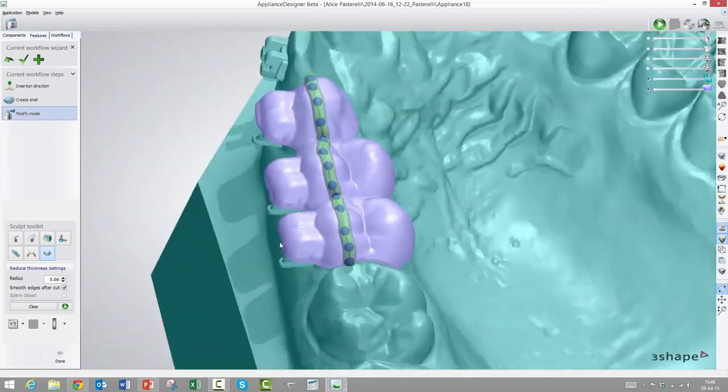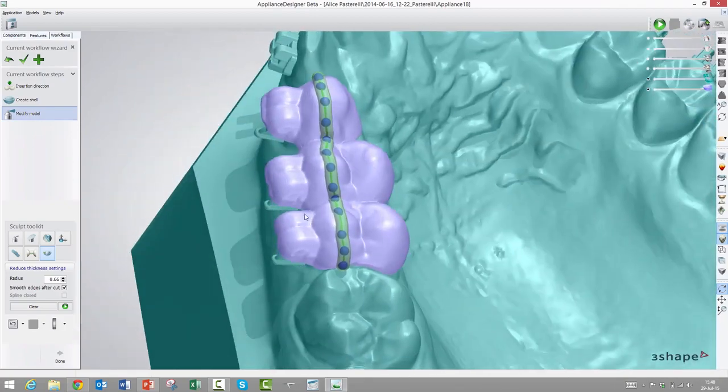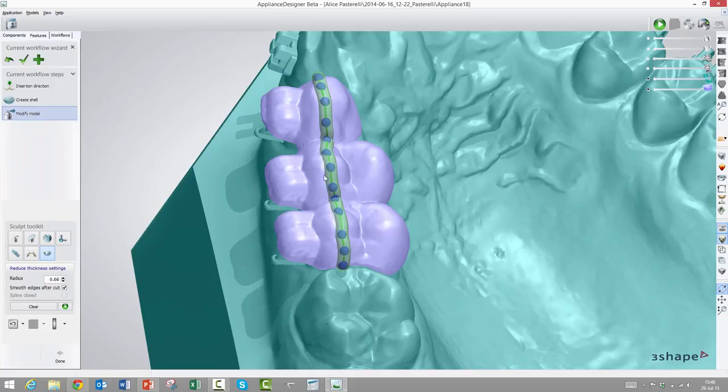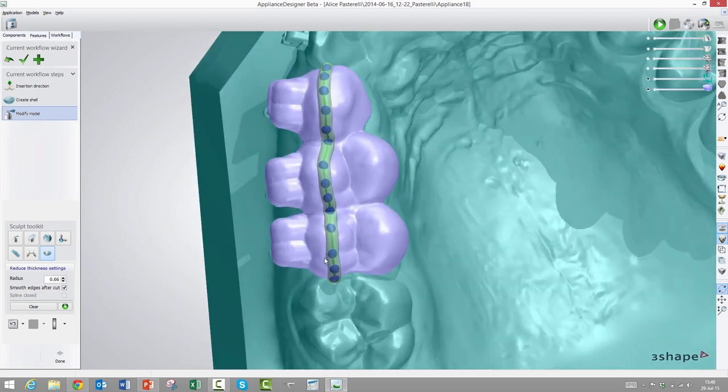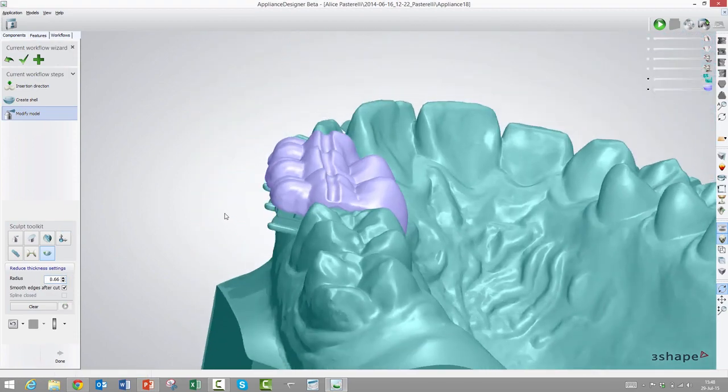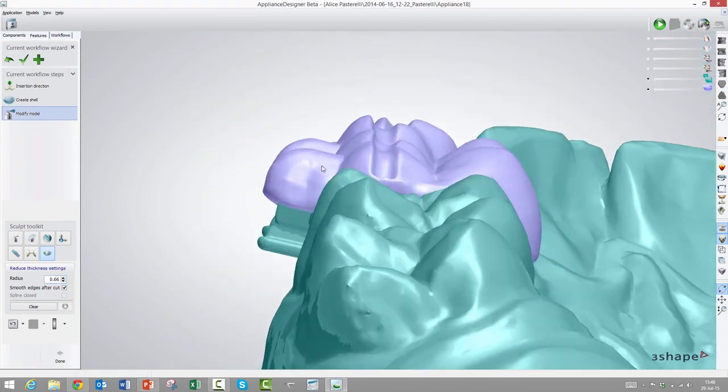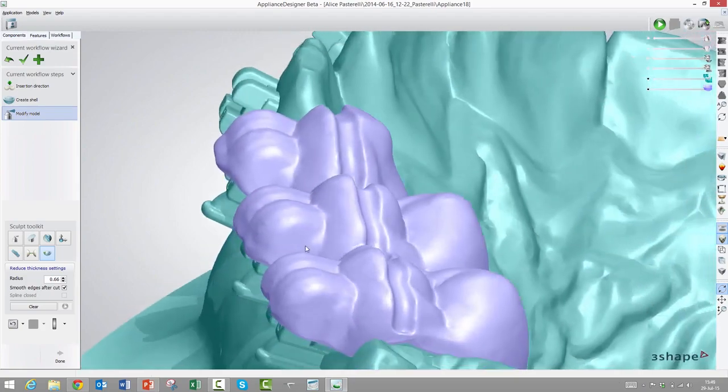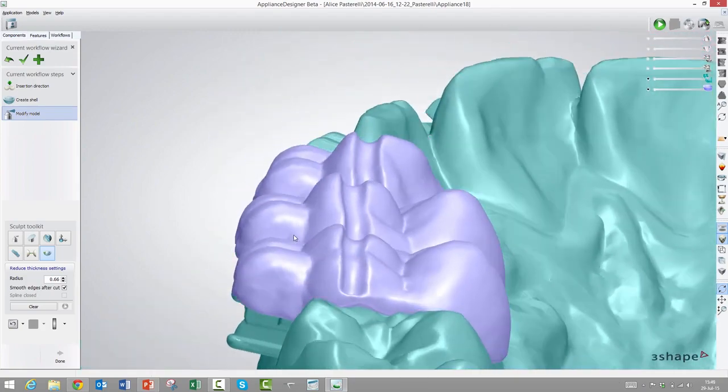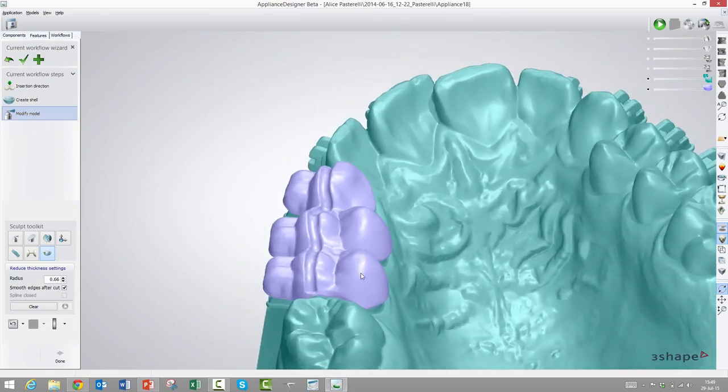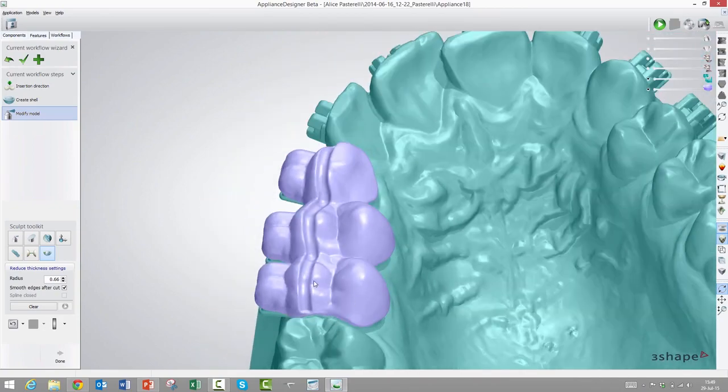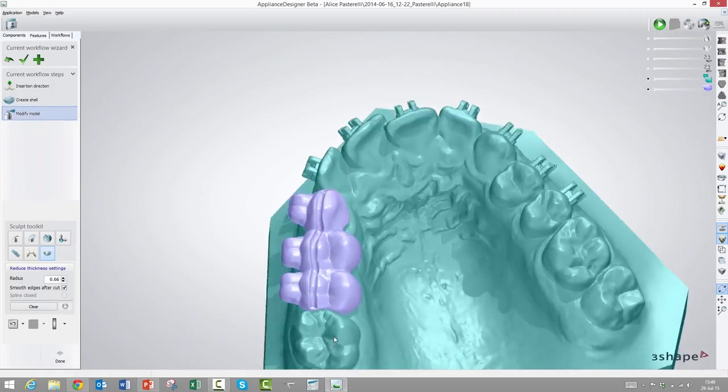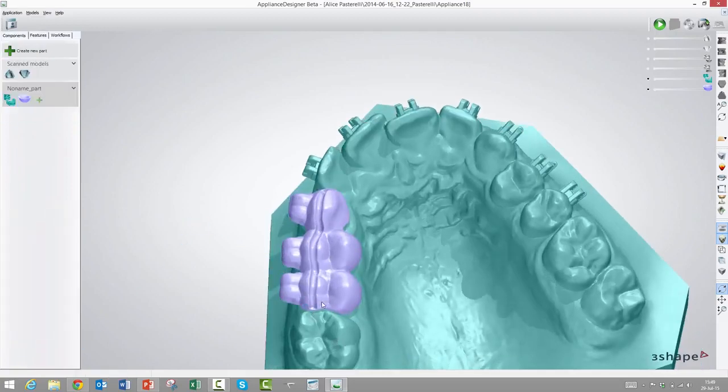Once you've clicked on the last one, then you double-click on it and then it will visualize this, creates a tube of sorts. And that would be subtracted. Sometimes if you don't put enough control points, then it will tunnel inside the model. Then you will just grab one of these control points and make sure that it goes outside the model again here. Once you are certain that it's outside here, then you just press play and now it will subtract this tube from the model. You can define the radius here. So now it can of course bend more easily around that. That's of course the idea, but that will be material dependent, but we just have made the tool available for you so you can use it.